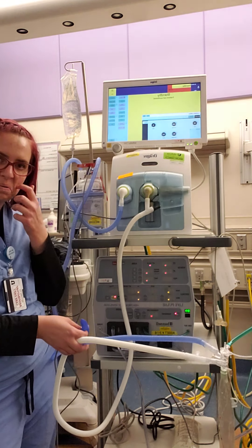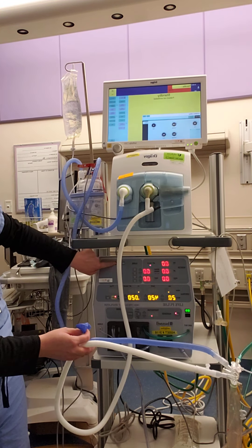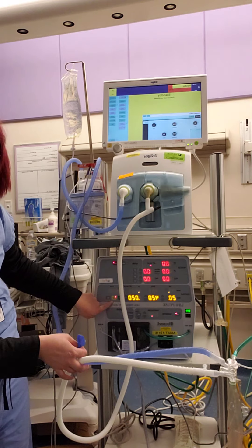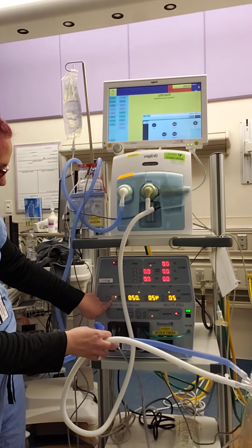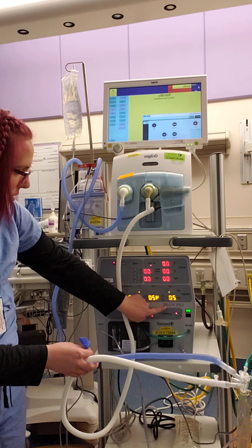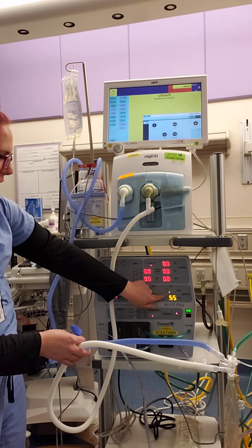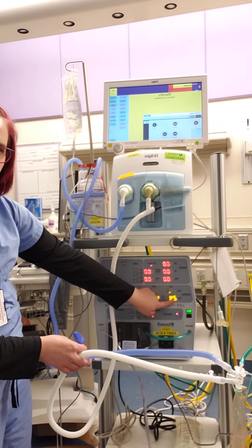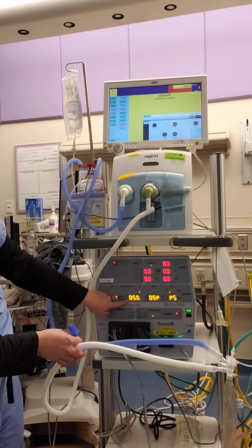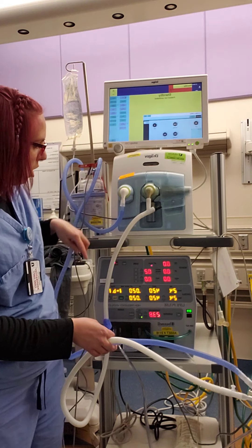Some other buttons — we'll go over again in the theory, but just to show you everything: silence buttons are up here. Enter and standby are down here. You can adjust your PIP — you'll administer a PIP, a rate, and an I-time or on-time. For this baby we're going to go to a PIP of 24, a rate of 420, and 0.02 I-time. After that you'll press enter and that will start your Bunnell jet.